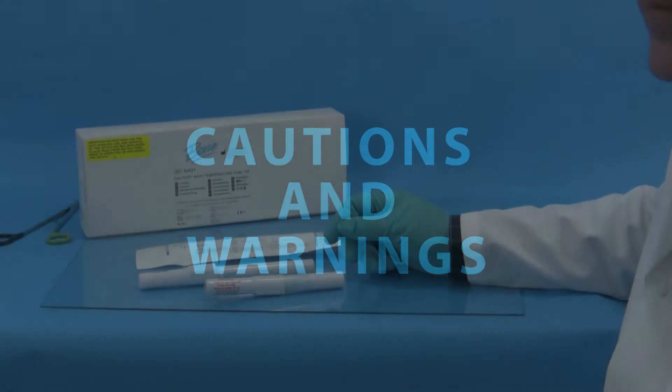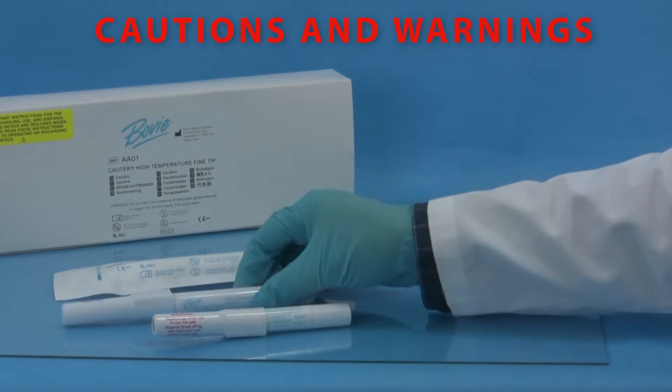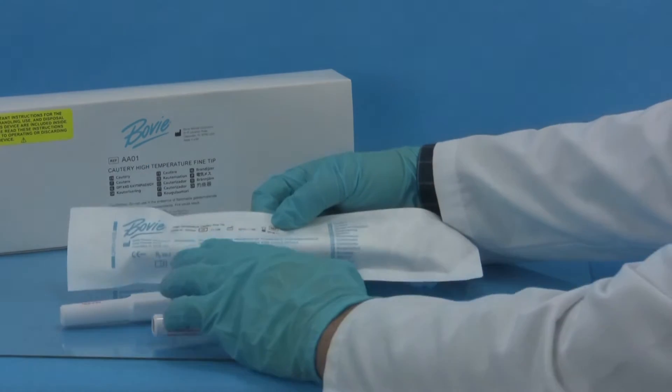Cautions and warnings. Read all warnings and cautions prior to using any handheld battery operated cautery device.